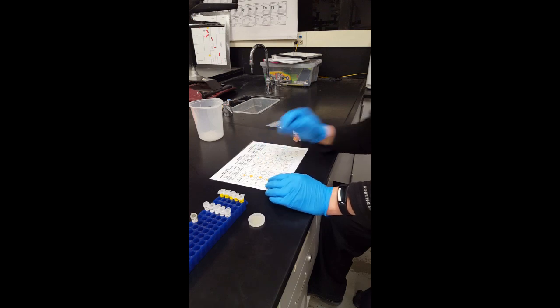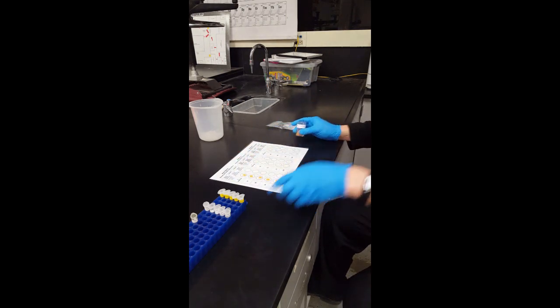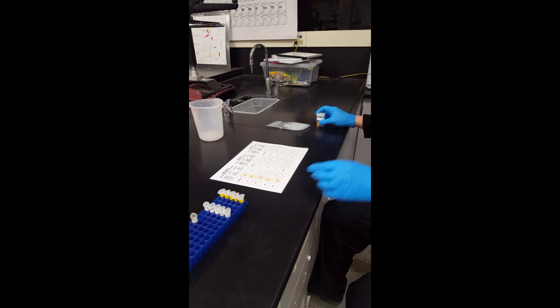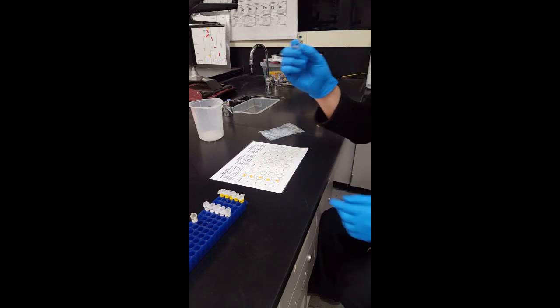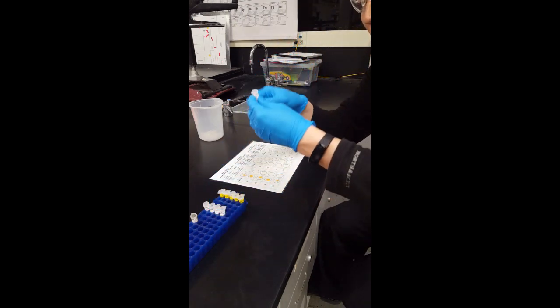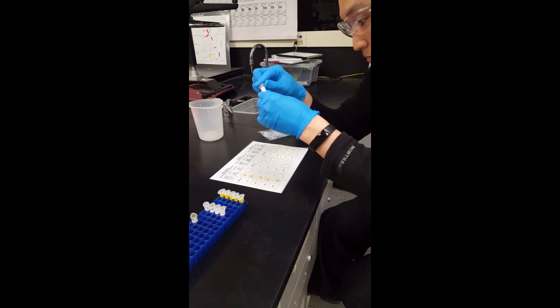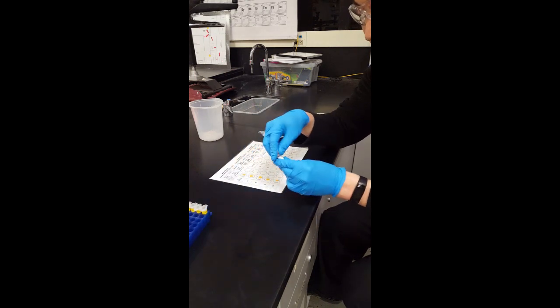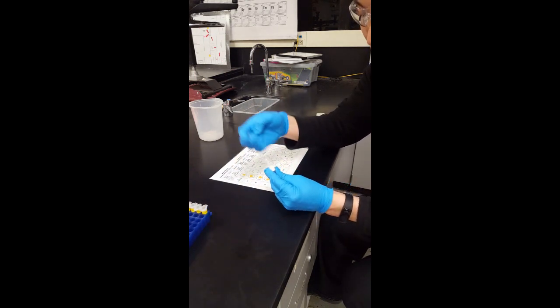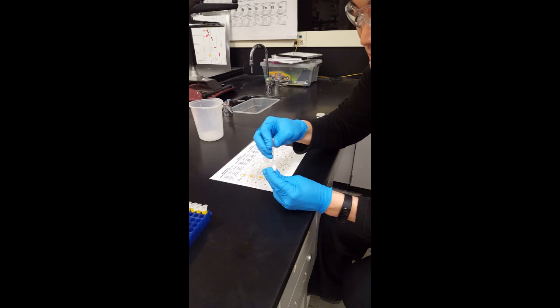The way that we can do that is we put the glucose strips there and we are going to use these transfer pipettes, these disposable transfer pipettes. And we are going to put her 0 minute plasma on the glucose strip right here that's on the 0 for fasting. So 0 on 0. So just like one drop would be good.